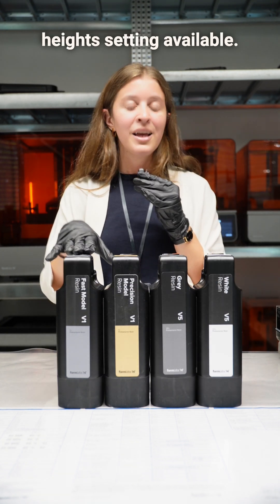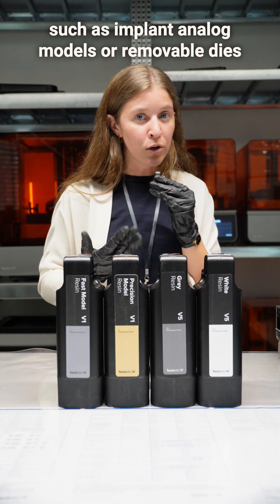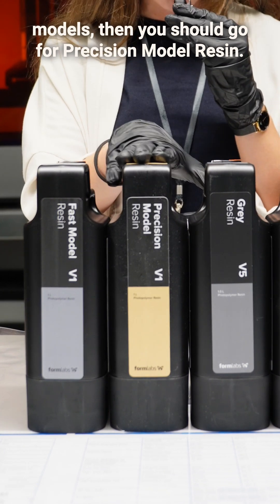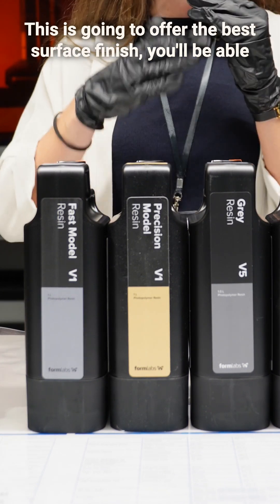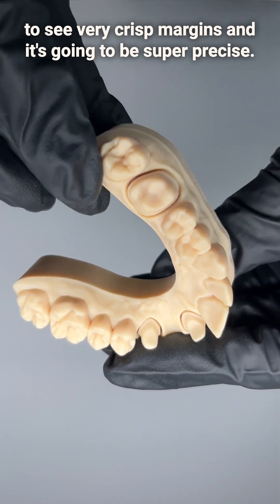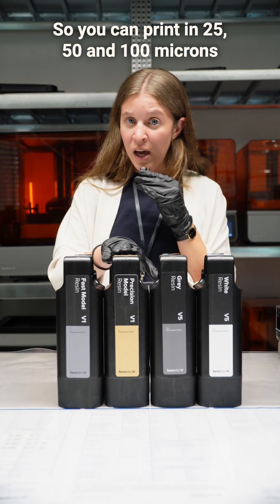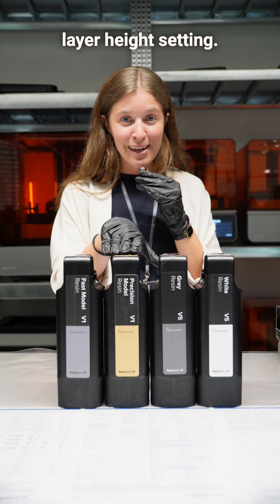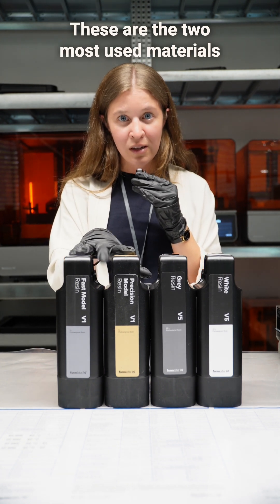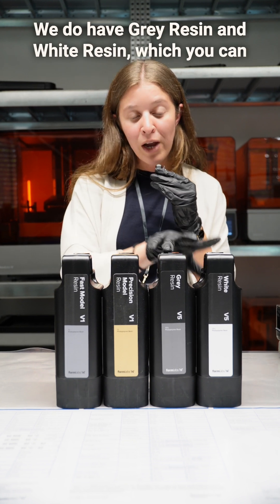If you're looking to print very precise models such as implant analog models or removable die models, then you should go for precision model resin. This is going to offer the best surface finish — you'll be able to see very crisp margins and it's going to be super precise. You can print in 25, 50, and 100 micron layer height settings.